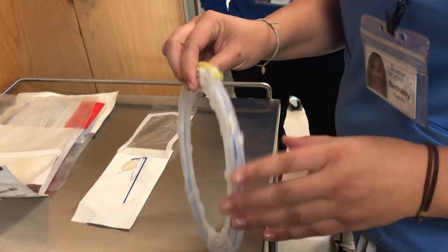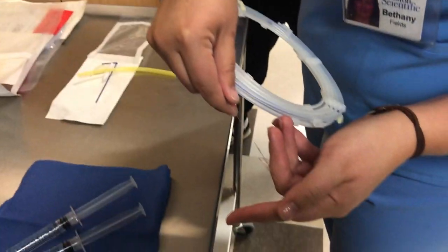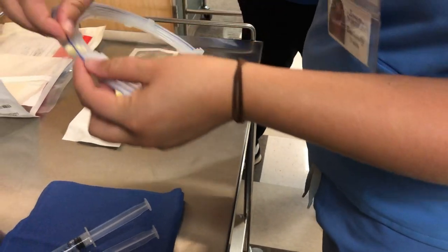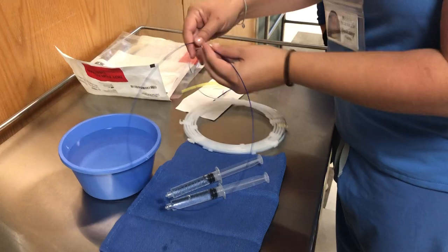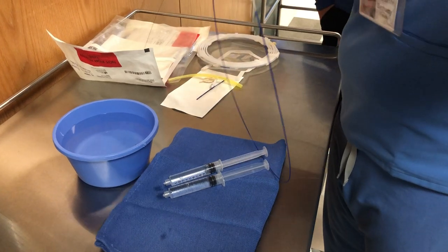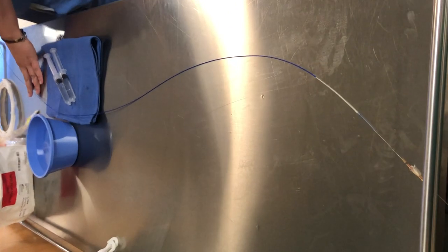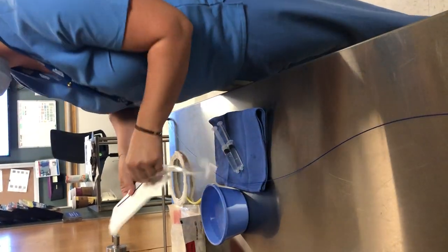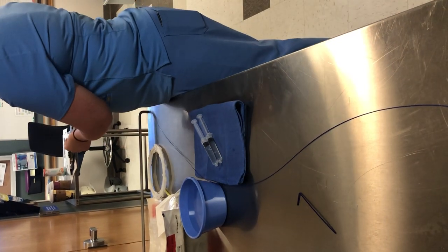For the wire hoop system, you don't want to throw this away after you take the filter out. This is the filter right here — you just loosen that and pull it out. From the other package, you don't need the leaf-shaped piece, but you do need the introducer sheath and torque device.